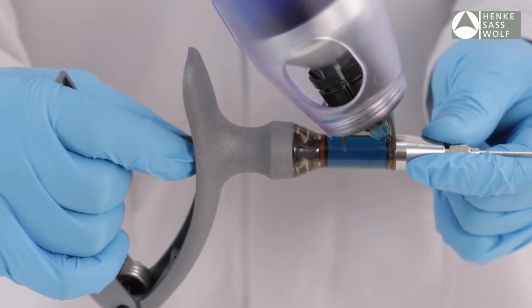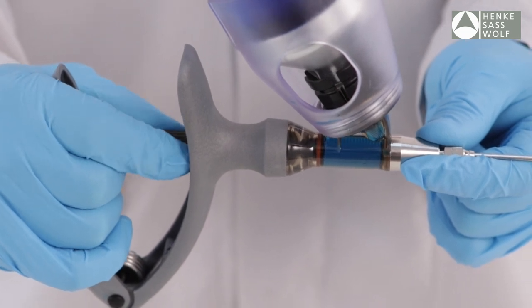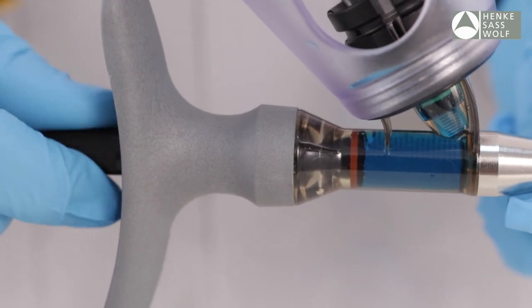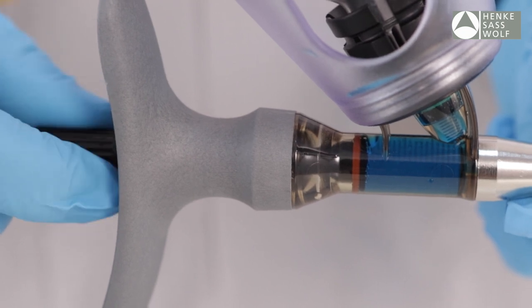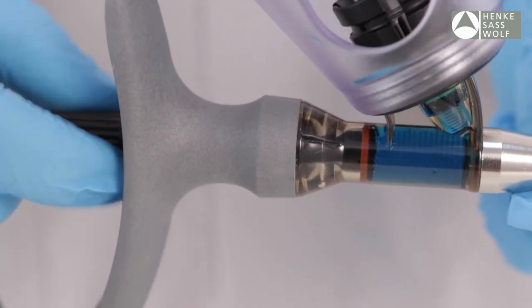In order to do so, turn the dose adjuster either clockwise or counterclockwise until the front of the piston is aligned with the dose setting printed on the barrel.